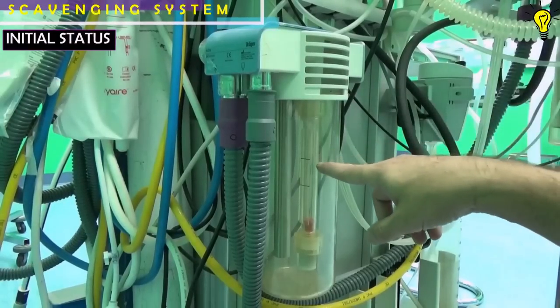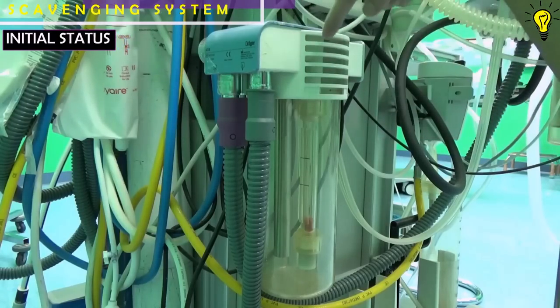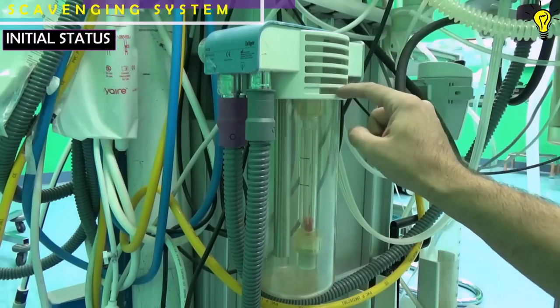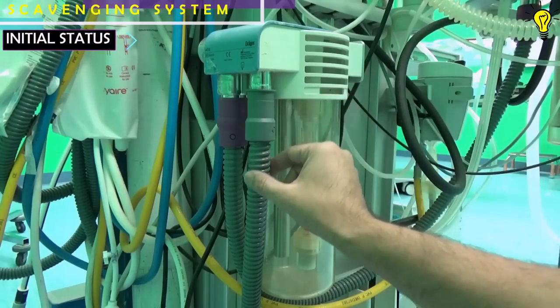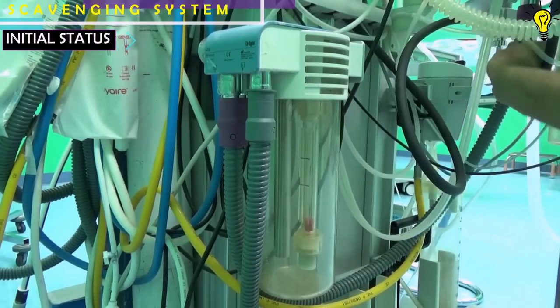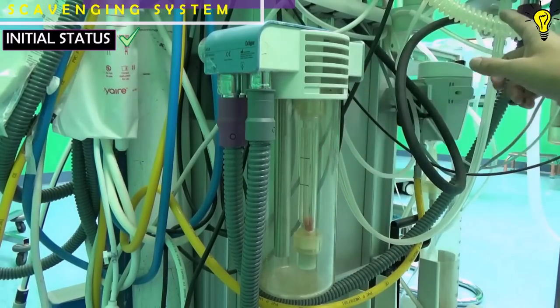The scavenging system attached to this machine is an open active system. You can see ports through which ambient air can be entrained if negative pressure builds up, and if excessive positive pressure builds up, air can be vented out through these ports. The hospital waste gas management vacuum line is also present here, making this an active open scavenging system. Make sure that all connections are properly fitted — this uses a 30 mm connector, which is different from the 22 mm connector of the breathing circuits.